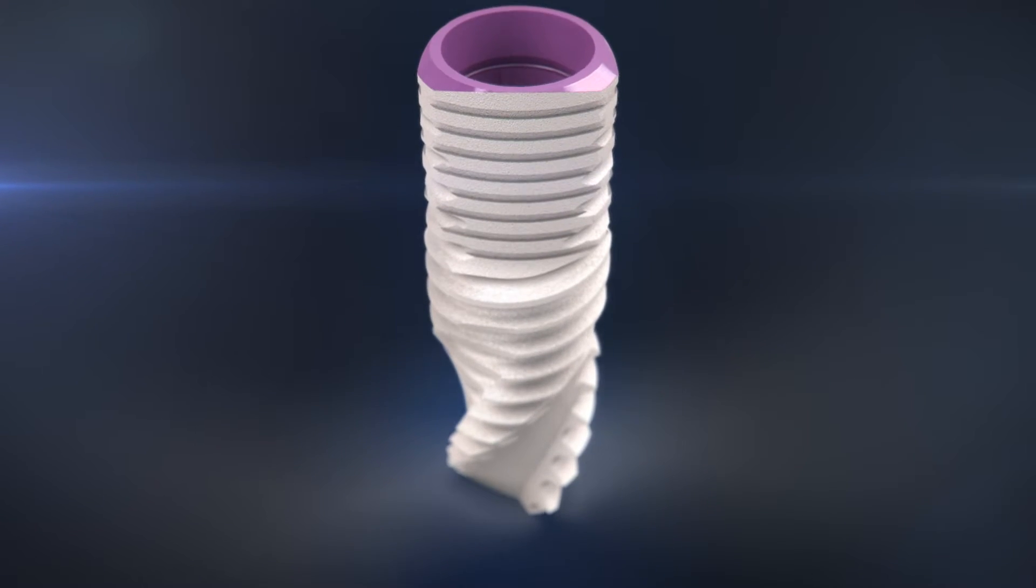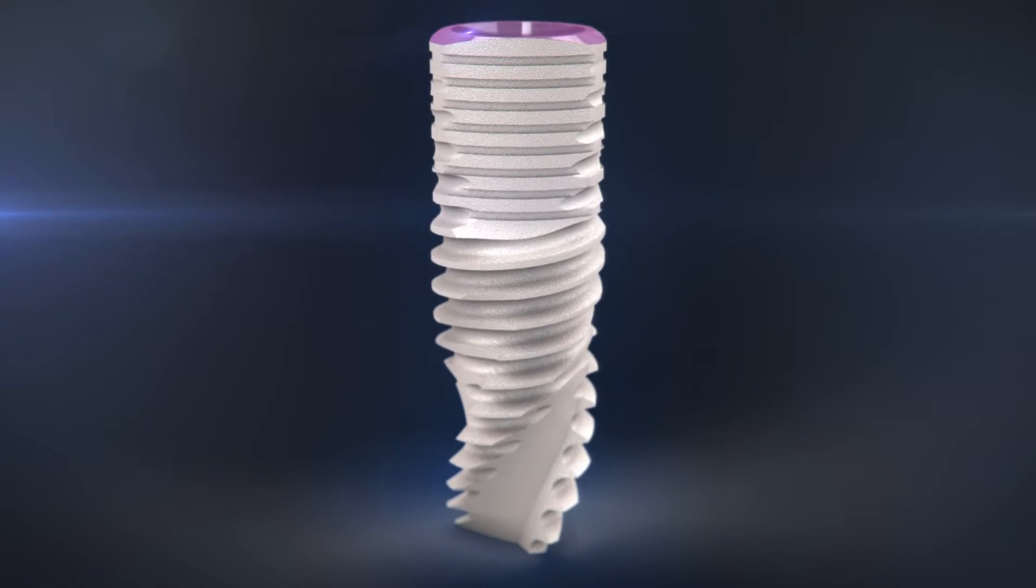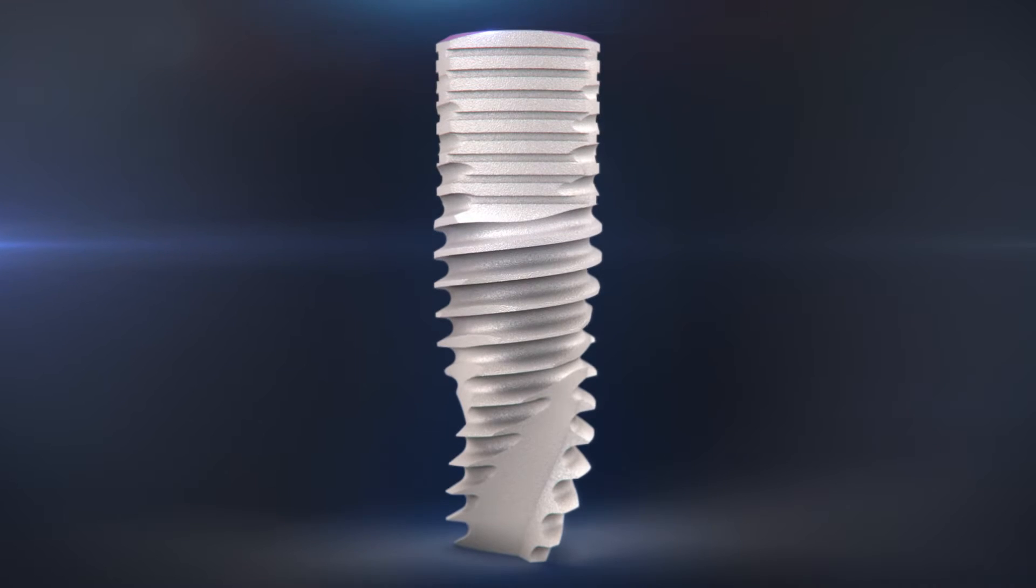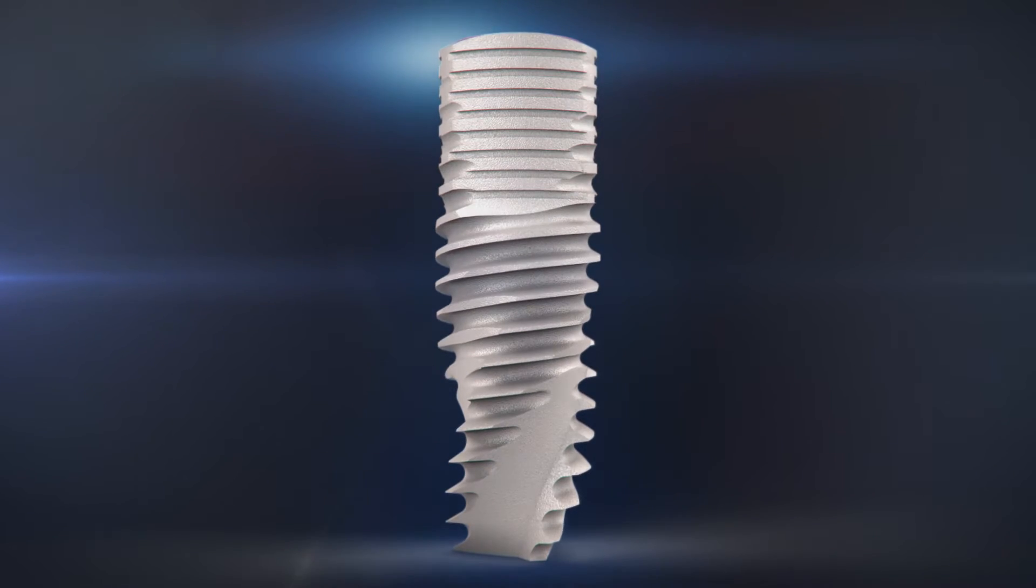MIS presents the V3, a simple yet groundbreaking new implant design that provides more bone where it matters most.